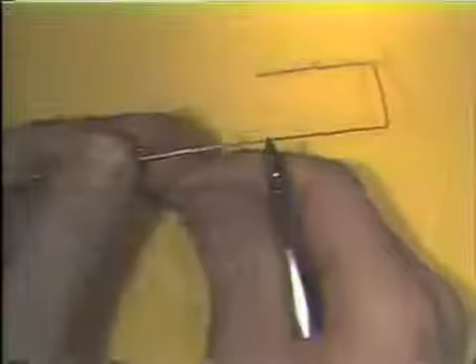The fourth bend is made using the same techniques as before. The wire is marked directly at the corner. The beaks of the plier are correctly placed. The wire is oriented in the beaks of the plier. And the bend is made 1/3 of the way.